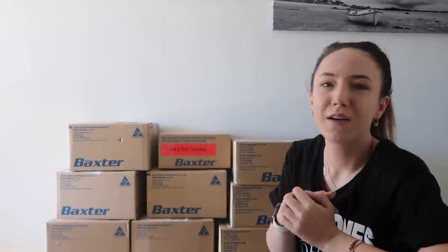And then the other three are just medical supplies that I need - like hand sanitizing stuff but the fancy hospital kind - like gloves, flushes, giving sets, that kind of thing, and I'll go through it when I unbox it. So today that's what we do: I unbox these boxes and go through it with you guys and show you where I store all my stuff and what an unboxing of our medical delivery supplies looks like.